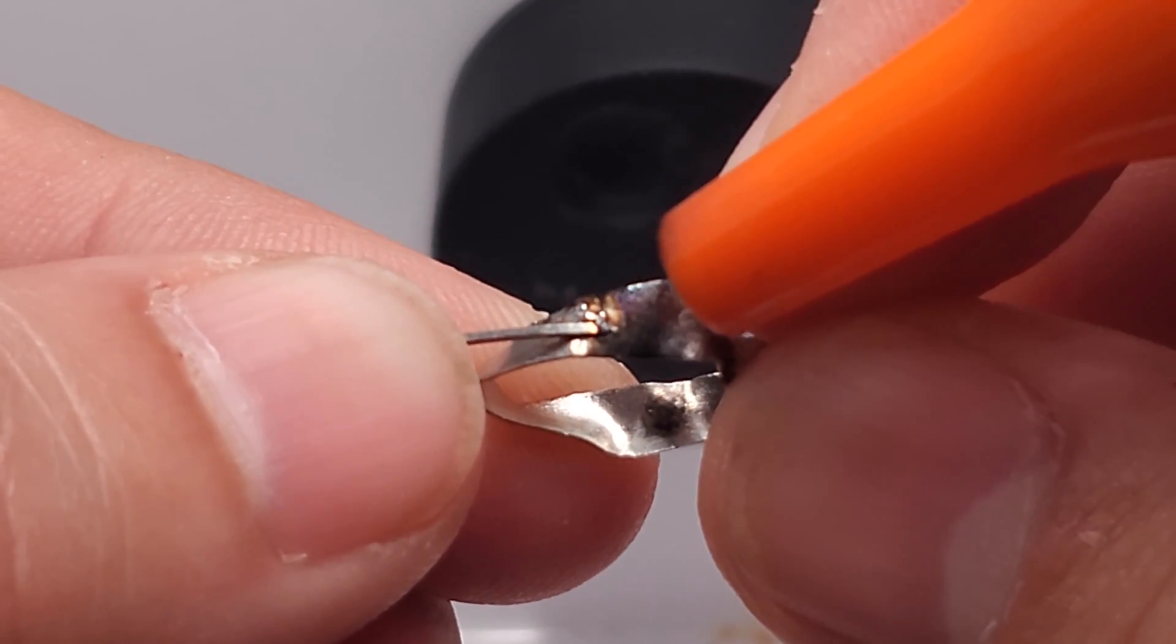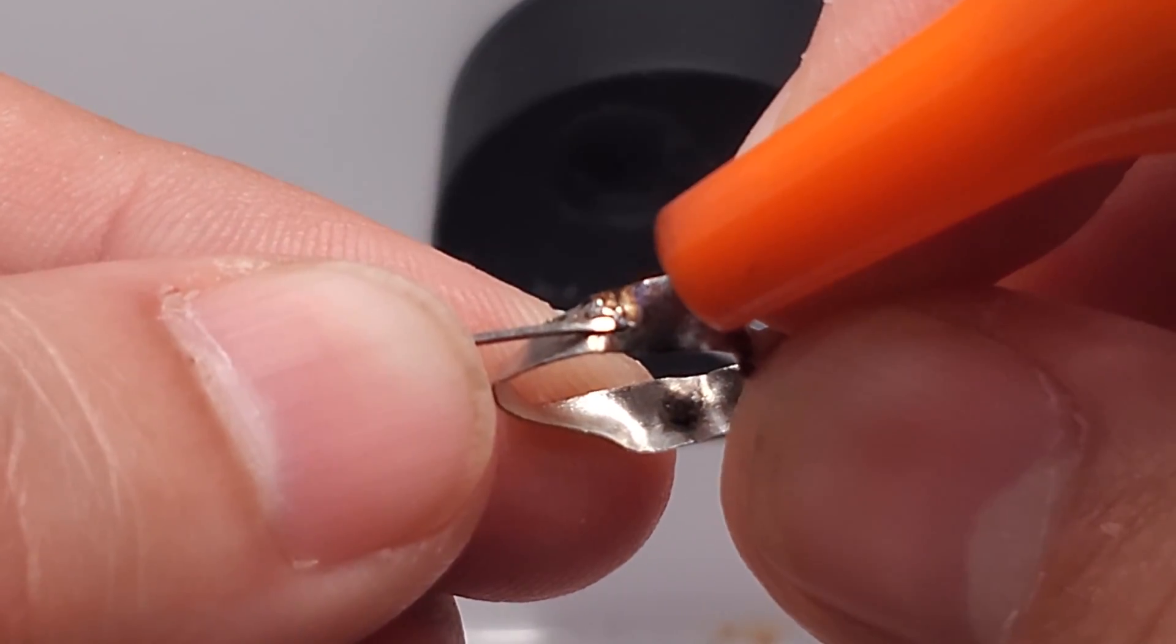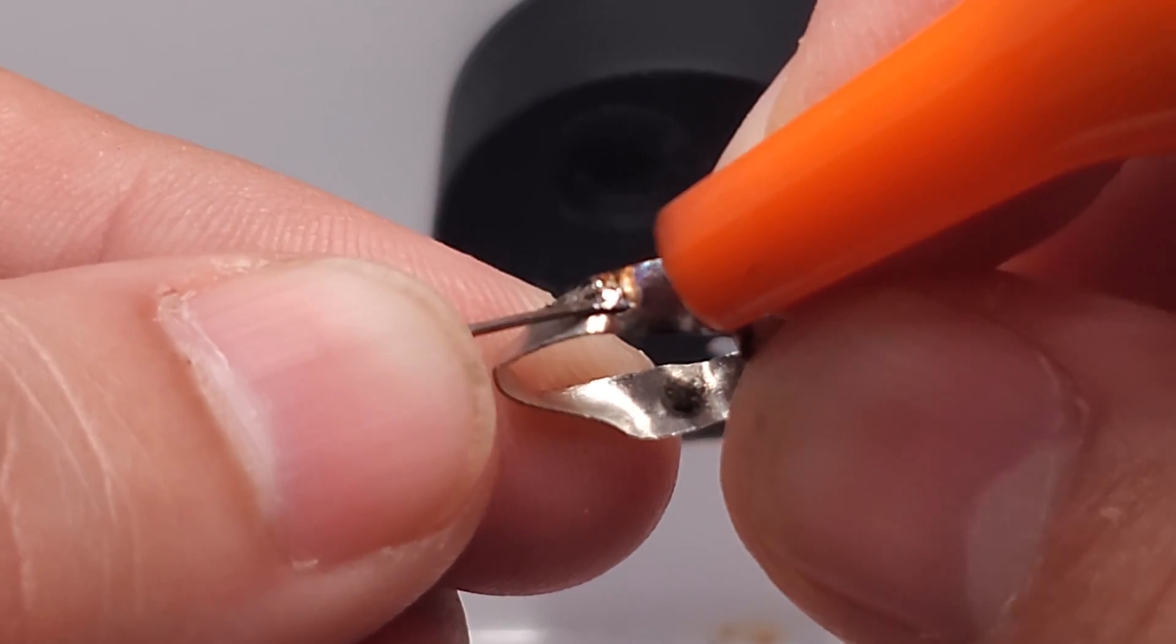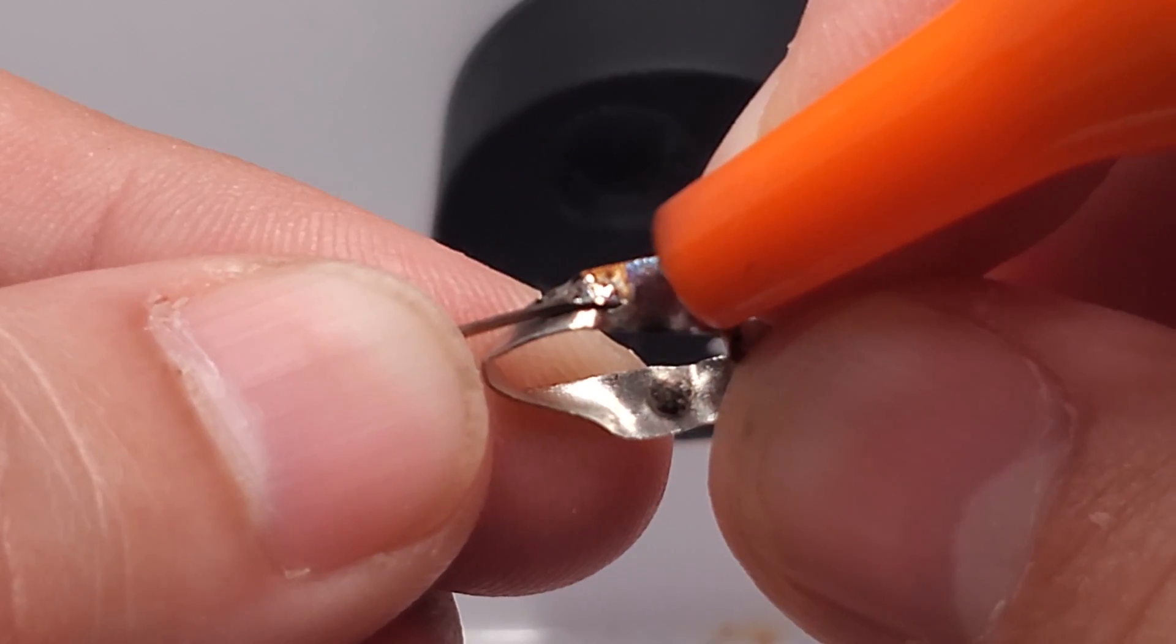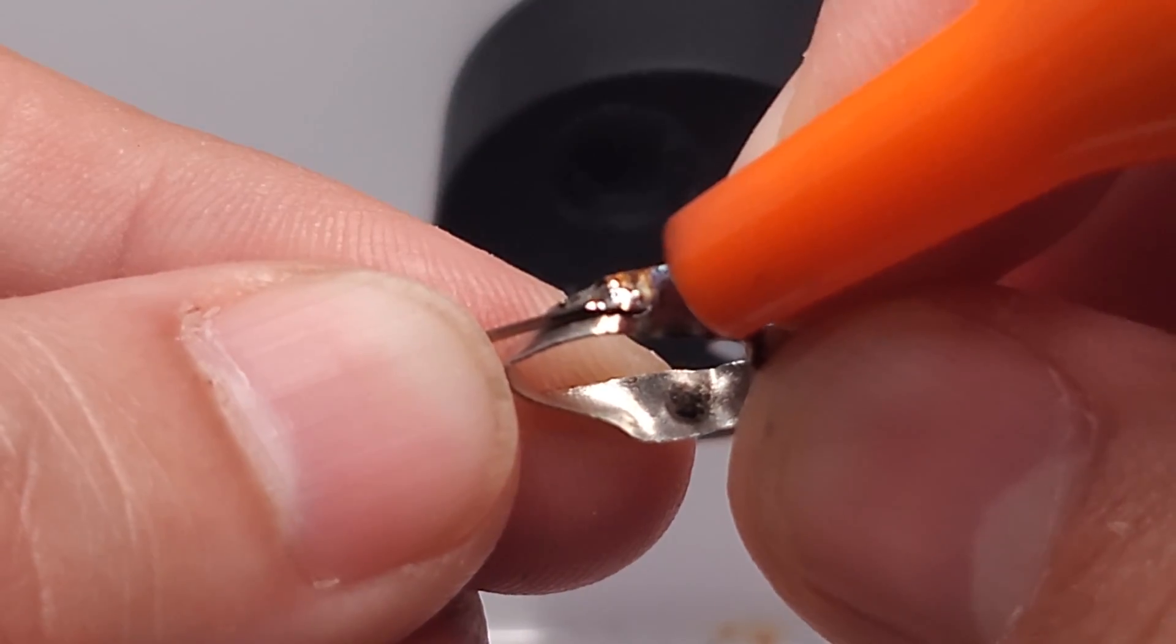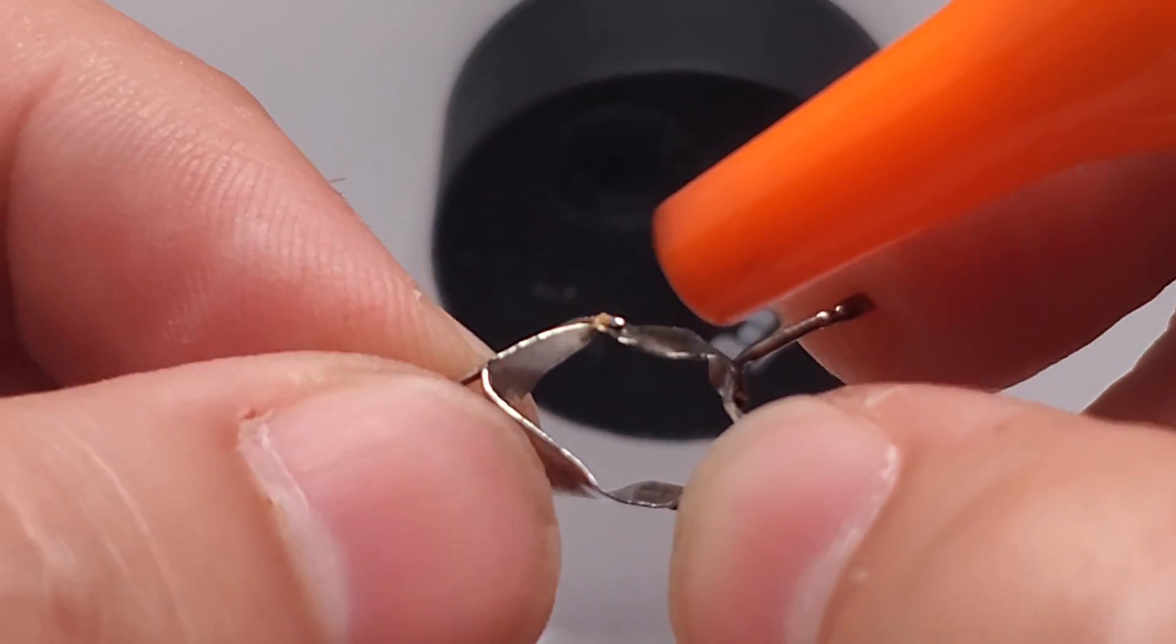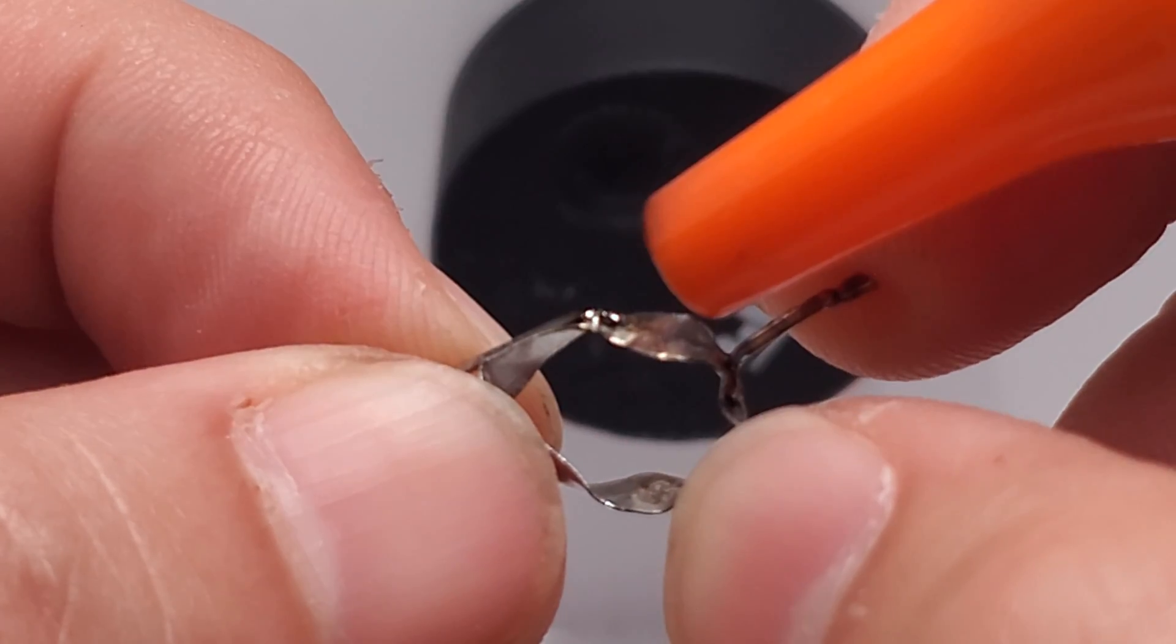I'm going to hit the wire and push that metal down onto the band, slowly walking it out. This is going to take some practice, but once you start seeing the metal move the way you want it to, you can start being a little more brave about specific choices to move that metal the way you want it to. I'm going to hit this other side on the wire at a 45-degree angle.